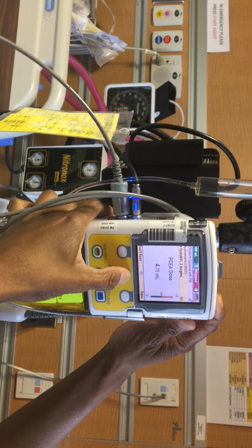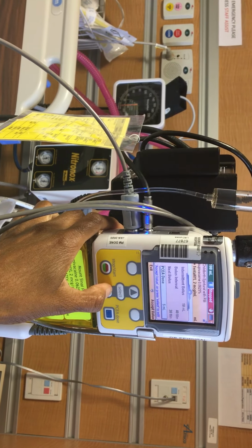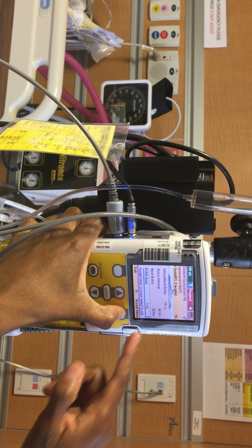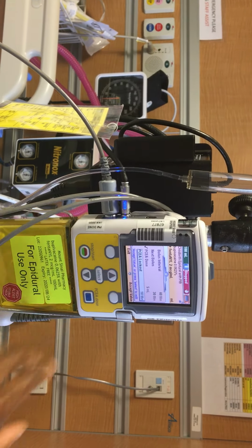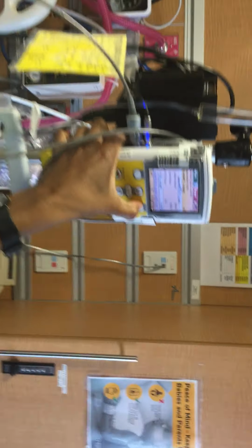And then once you hit save, it's going to ask you to review the program, and it's going to ask you to accept each one. So you're basically checking things twice. So you accept the dose, the value that you've written. The lockout just means that the client can't have a self dosage or extra boost more than every 10 minutes. So you'll want to accept that.